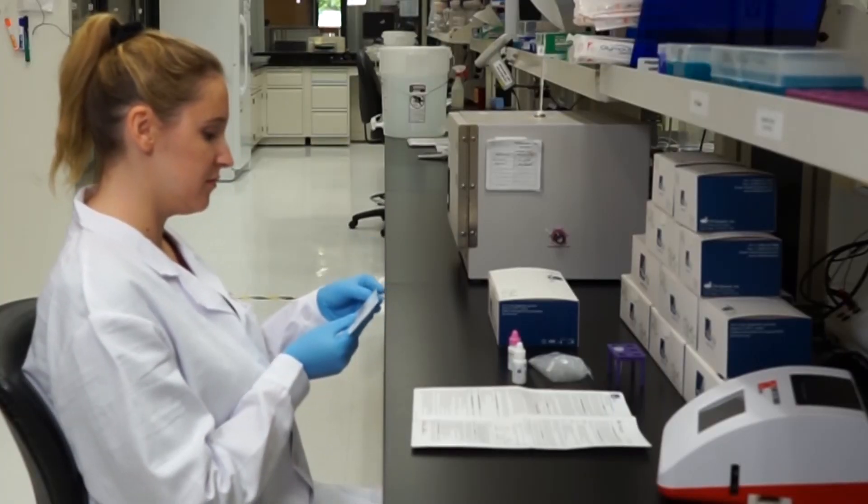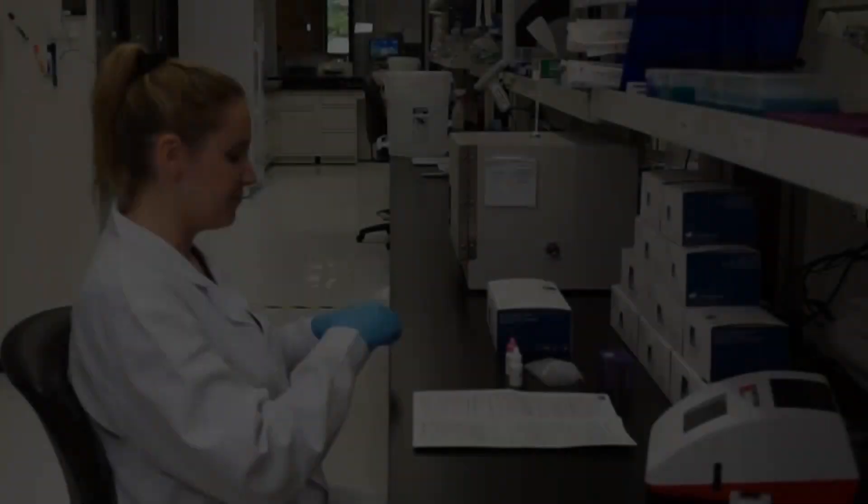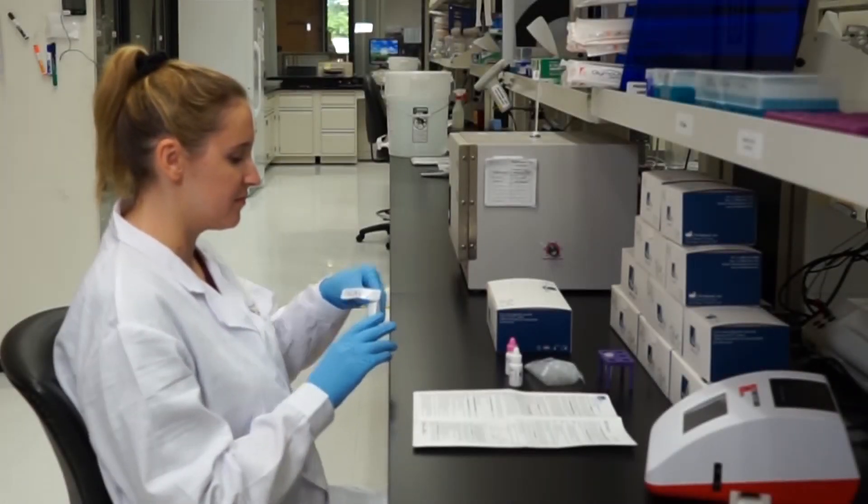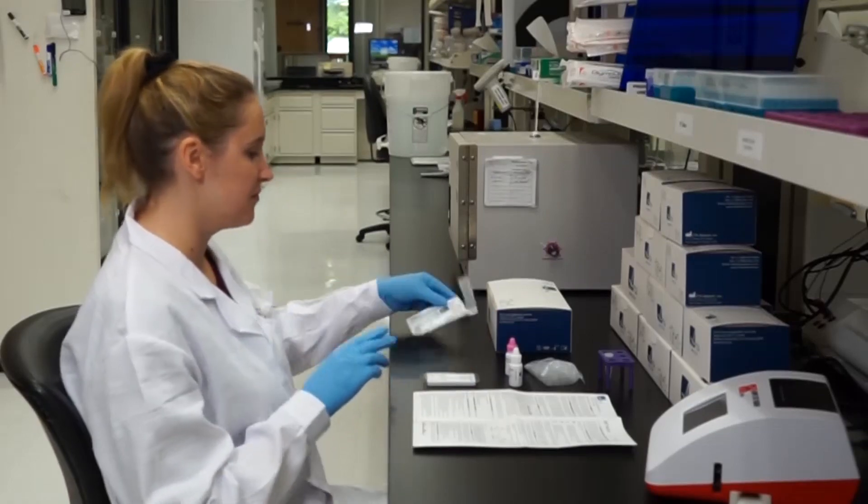Before using the test cassette, check the expiration date. Open the pouch and remove the device, placing it on a clean, flat surface.